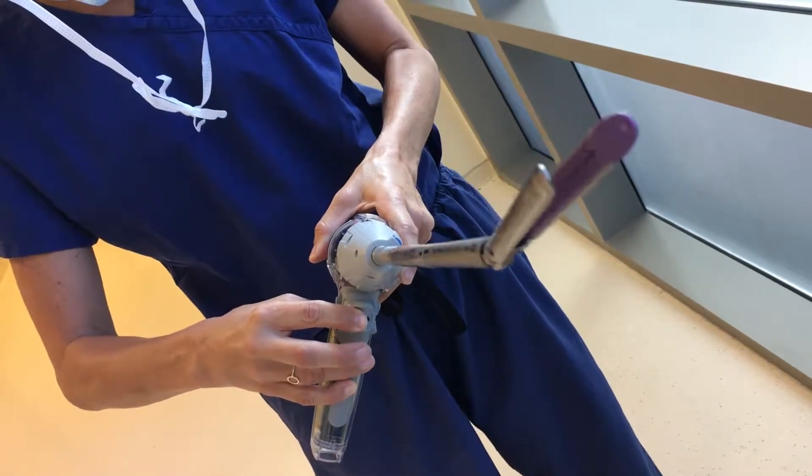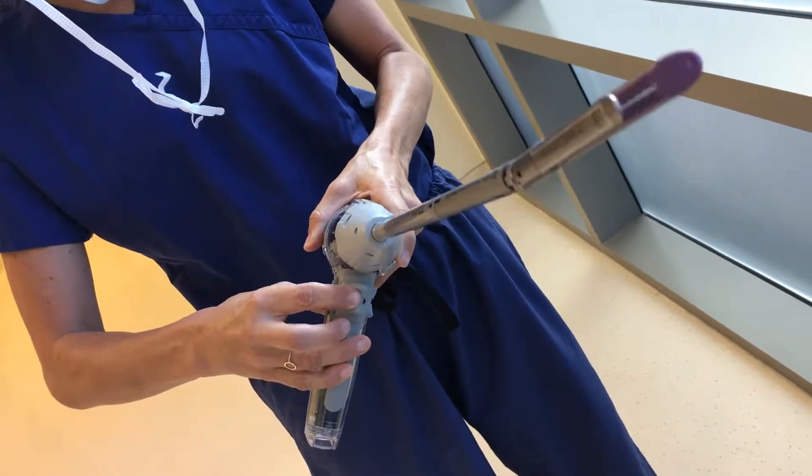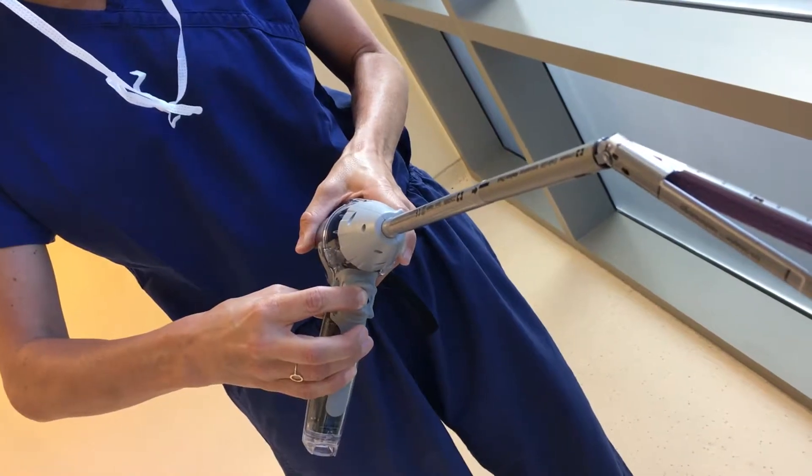If you push it, it's going to stop at the neutral position, and then you'll push it again for it to articulate in the opposite direction.